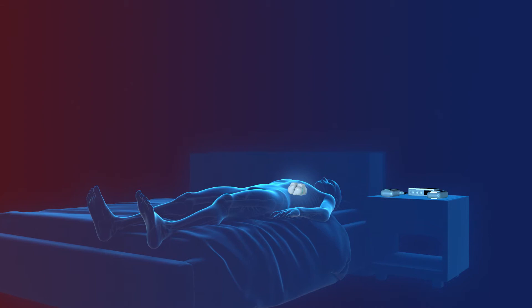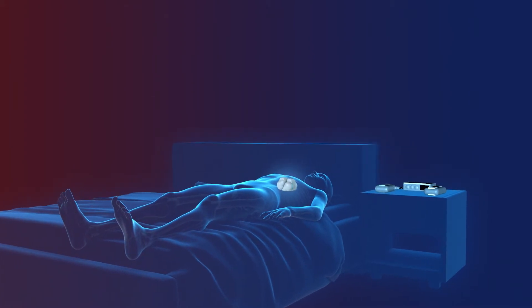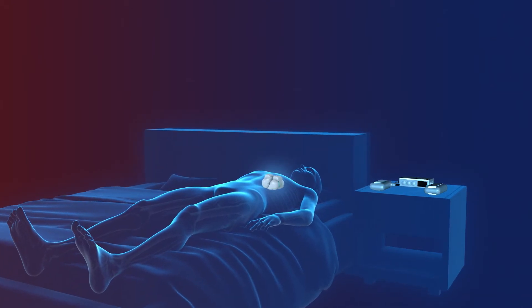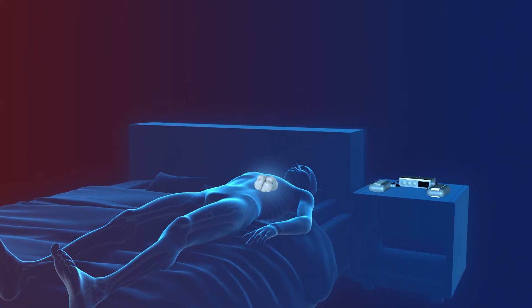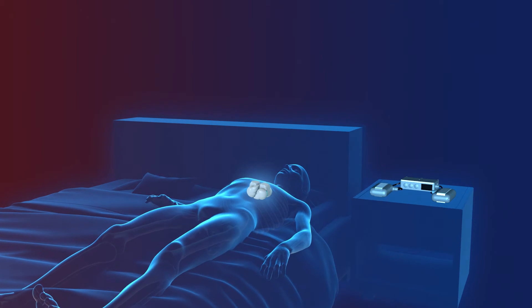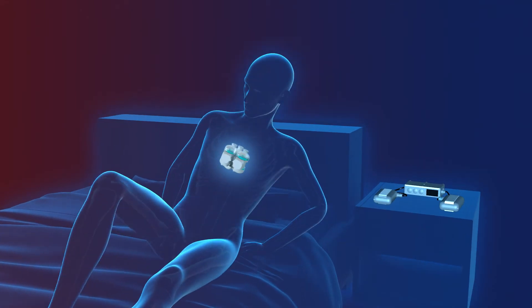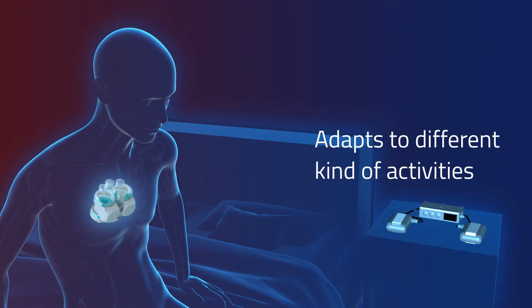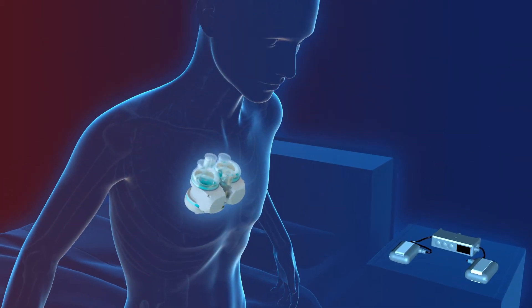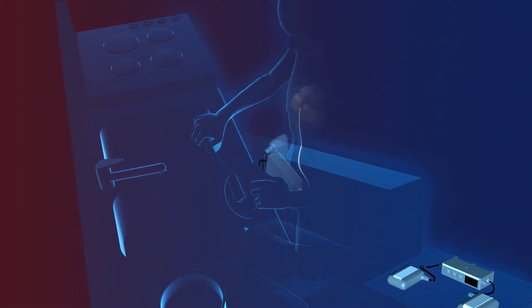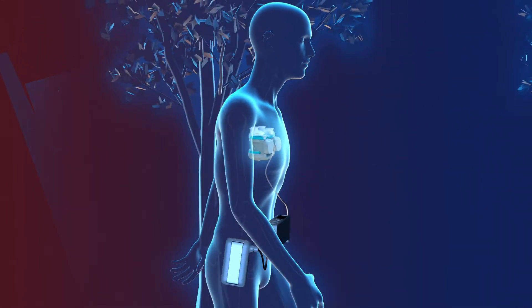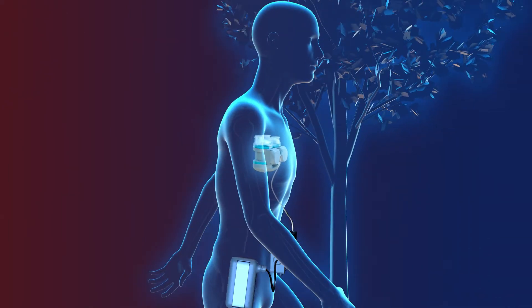Realheart's practical technical system aims to give the patient a normal life whilst having an artificial heart. For example, the controller is designed to allow the Realheart TAH to vary the amount of blood pumped by regulating the stroke length of the AV plane movement and the number of pulses. This provides unique possibilities to adapt the amount of blood to each activity: one pattern of blood for sleeping at night, one for moderate activity, and a higher pattern for brisk walks, similar to that of a gearbox in a car.